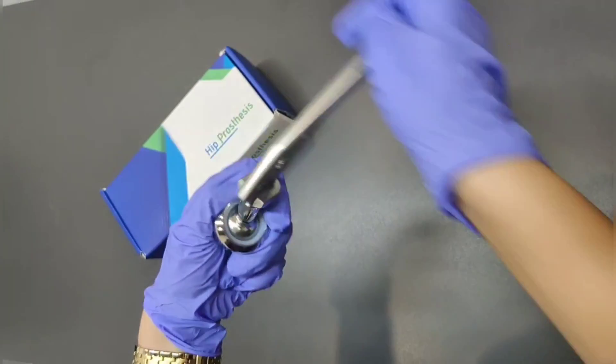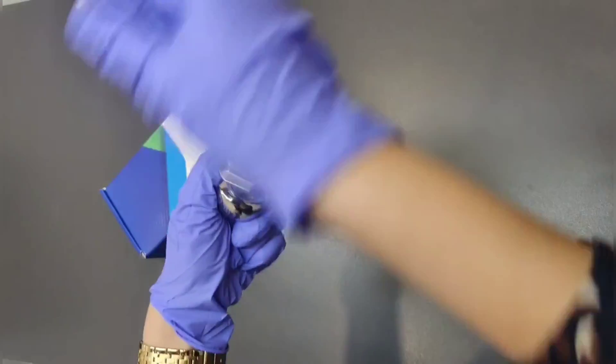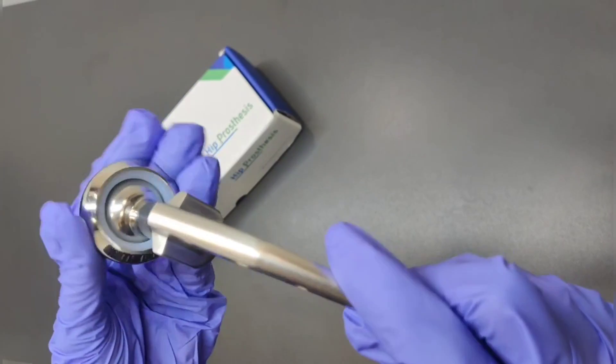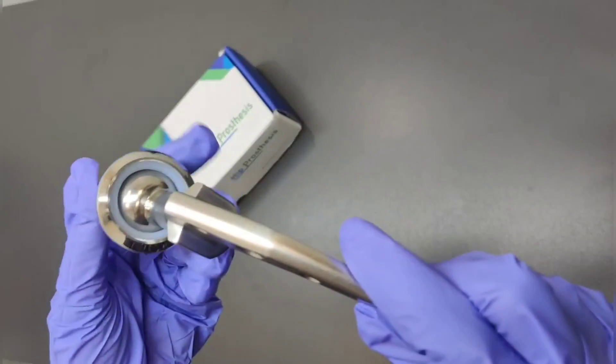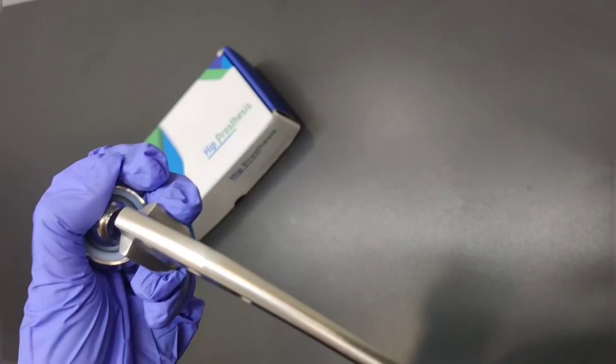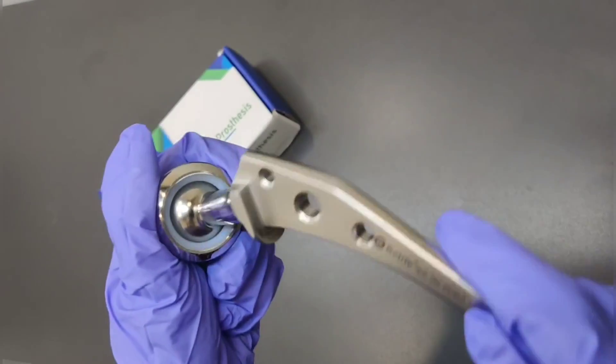This is a remarkable implant for hip replacement surgeries. Its dual component design enhances stability, enabling a wider range of motion. Surgeons appreciate its surgical versatility while patients benefit from the biocompatible materials used in it.